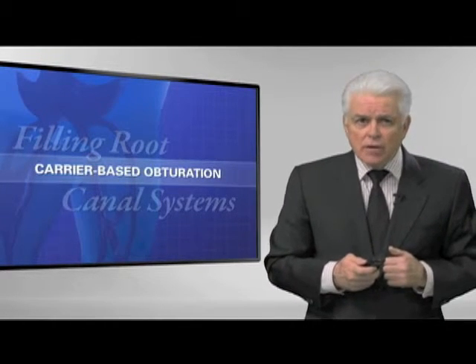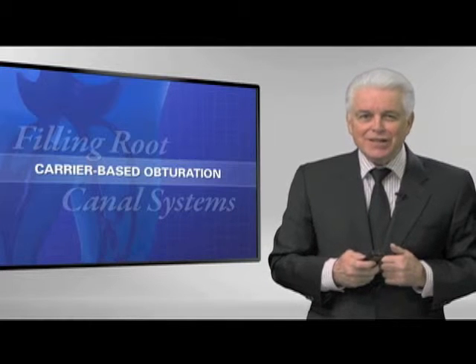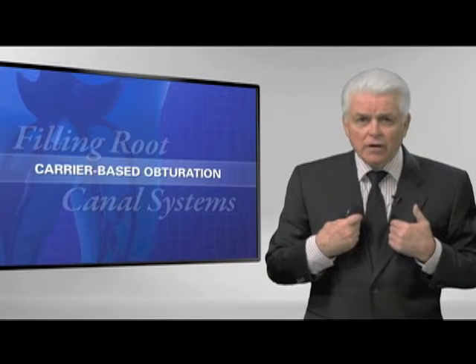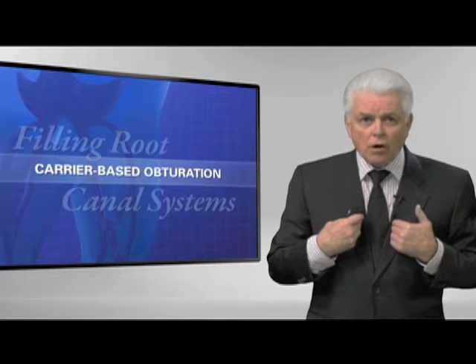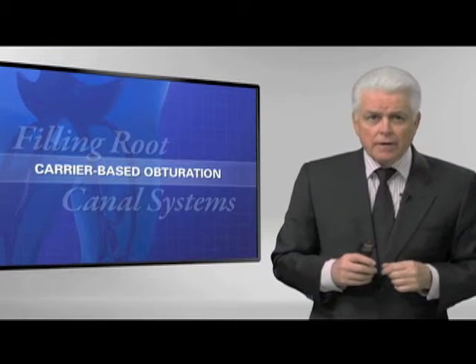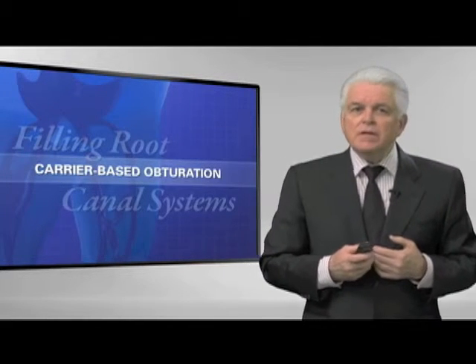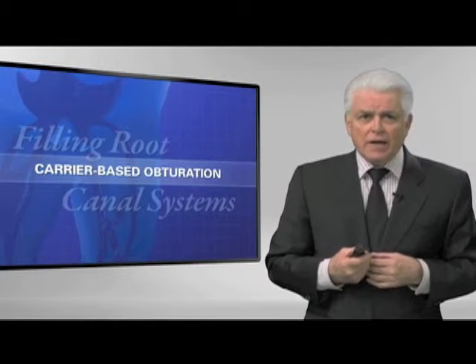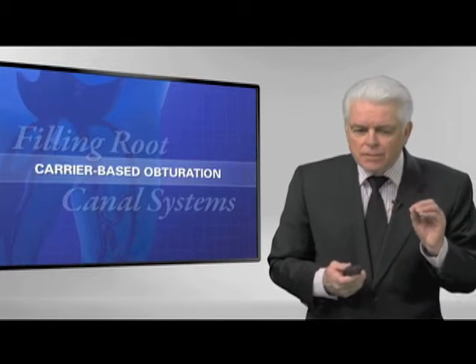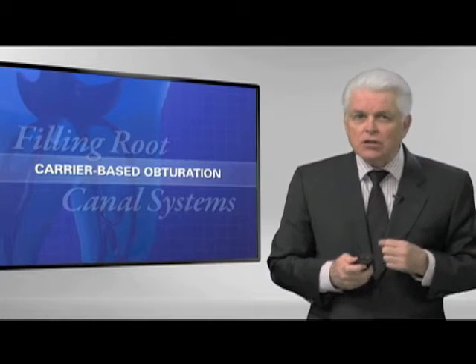How many of you are using a carrier-based obturation system? Surprisingly many — and as an endodontist, I embrace this concept, though I didn't always. I've had to apologize internationally. Science, evidence, and a cascade of histological evidence made me rethink the carrier-based idea. I've been teaching carrier-based obturation in my classes in Santa Barbara, California, but there's a new kid on the block. There was always a stigma among endodontists about leaving a carrier behind.